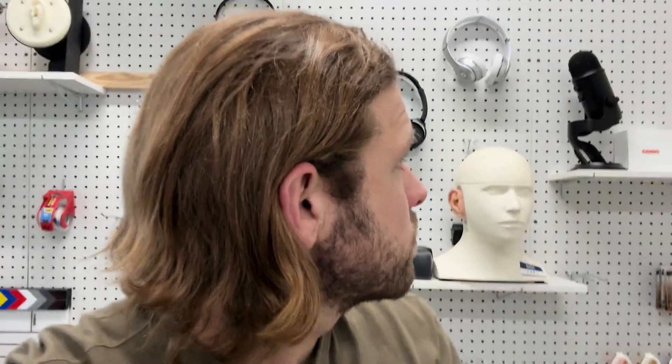Eargo 8 is currently one of our favorite in-ear, invisible-style products at soundly.com. We've put these in the hands of a lot of customers over the last year, and through that process we've learned a lot about the common questions that folks ask about the Eargo setup, the Eargo app, how to control the sound, how to make things more comfortable. In this video, we're going to dig into all of that. I'm going to take you in-depth into the app, show you all the little corners that you need to know about, and by the end of the video, hopefully you'll be equipped to either set up your hearing aids or get the most out of them if you already have them.